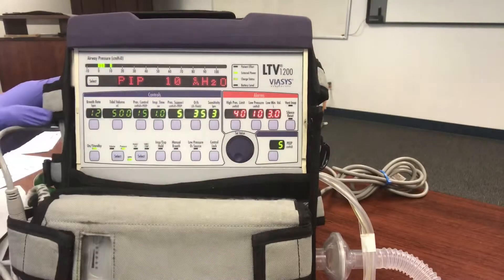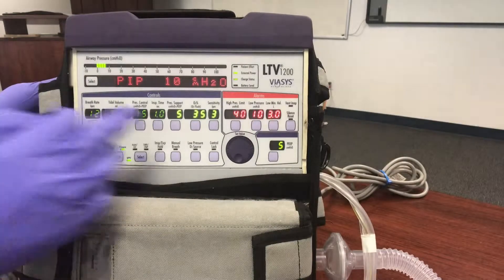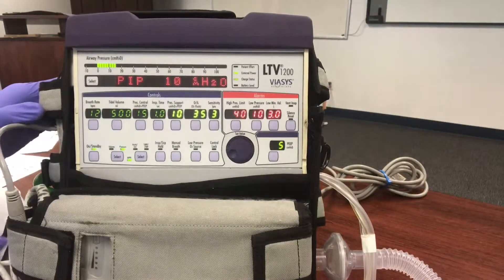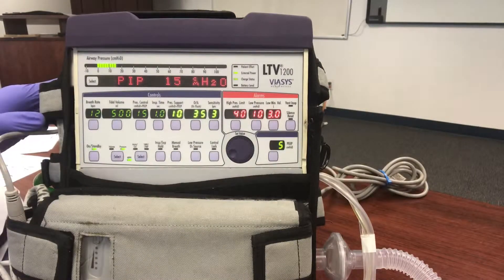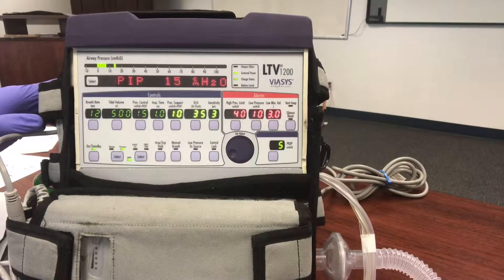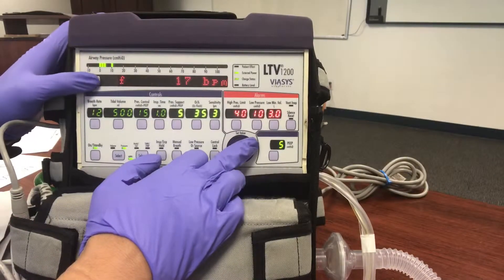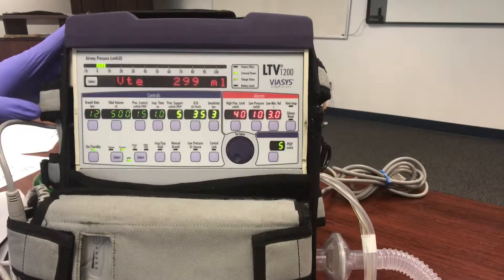A lot of times we have non-compliance with patients on the LTV just because it's set too high. If you get your patient on a 10 over 5 setting, they're actually getting 15 over 5 — that's 5 centimeters of water higher and it could be too much. Too much inspiratory pressure goes into the stomach, burps the mask, and is not comfortable. Make sure you're using this correctly. It's okay to go with lower settings as long as you're getting a good tidal volume — 500 mL is plenty for an adult, 350 and up if they're doing consistent volumes and vitals are good.